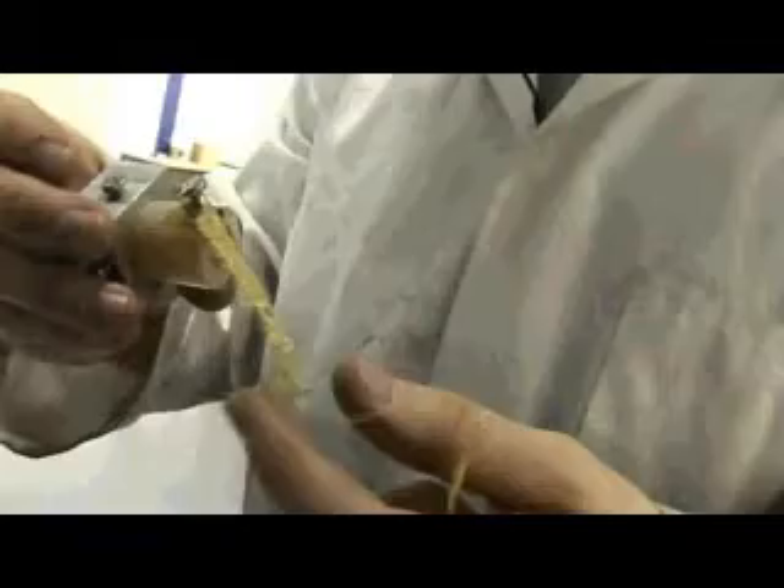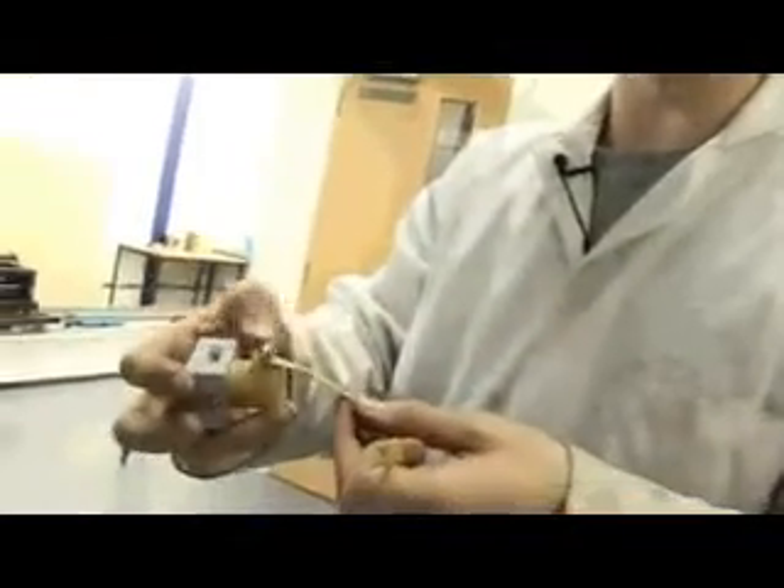As we can see, it's been screwed in. It's got the artificial ligament that's got holes in the ends, so that's where it's meant to be screwed into the bone. That's what I've used to attach it to this, which is the stuff they use for fake bone as well — it's like glass fibre stuff. Unfortunately this is like the weak point of it. So rather than actually extending and breaking the ligament, it's just broken there — it's ripped out through where the screw has gone through. The rig itself survived and it did break, so that's encouraging.